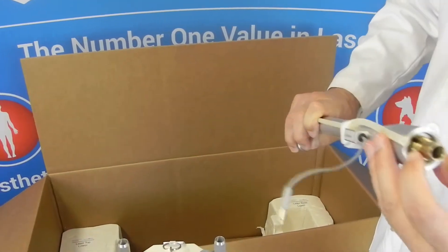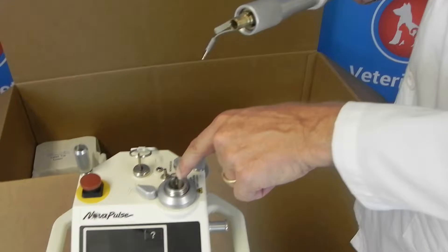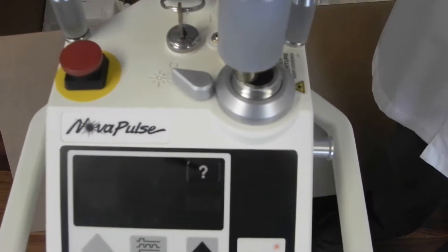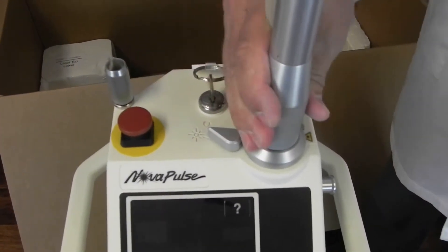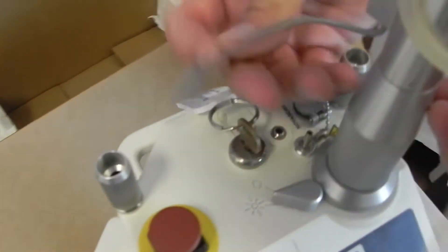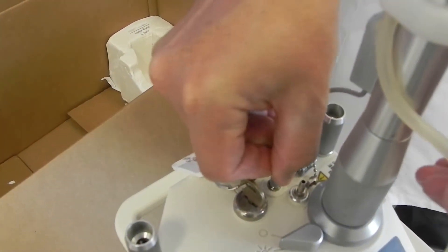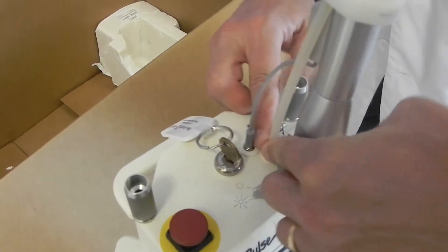When you take it out, if there's a dust cover, remove that. On the inside of it, it's keyed — there's a little cotter pin right there which will fit into that key spot. Position it so the key will go into that slot, and then just tighten it down with your hand. Don't over-tighten it, just so it's snug. You will also plug in the grounding plug — make sure it snaps in — and then take the air purge hose and just attach it to the nozzle there.